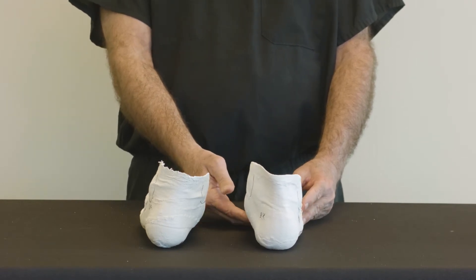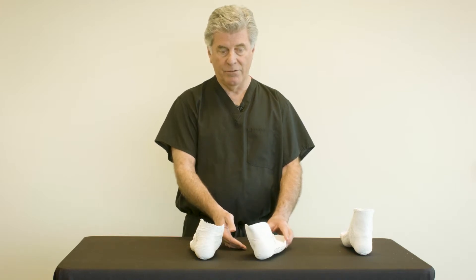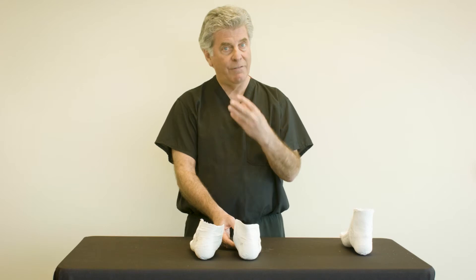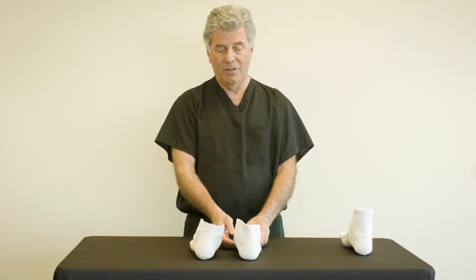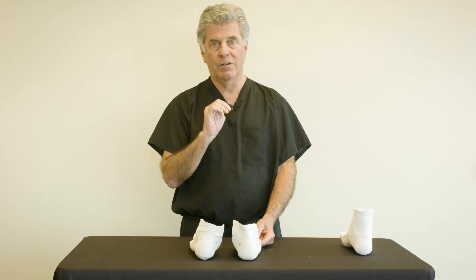The problem is when the patient steps on this orthosis or brace, the inverted forefoot will now slide laterally off the brace. This is one cause of lateral slippage when a patient gets fitted for their Ritchie brace or even a foot orthotic — the patient is slipping off due to over-correction of the forefoot, which starts in the office setting by failure to reduce forefoot supination deformity.